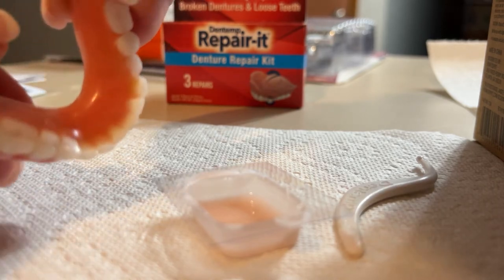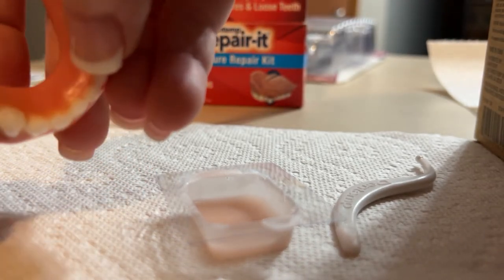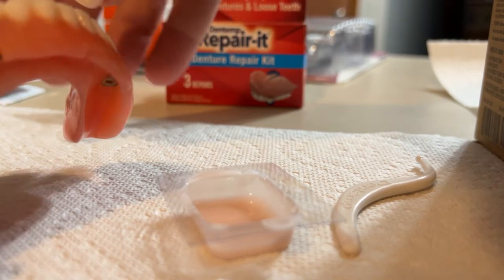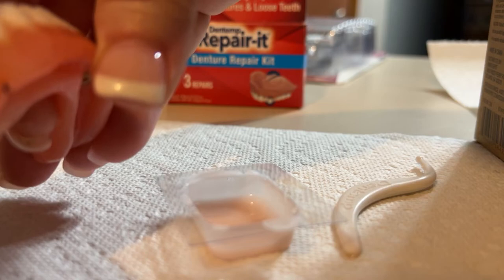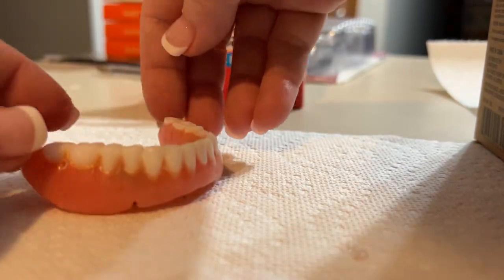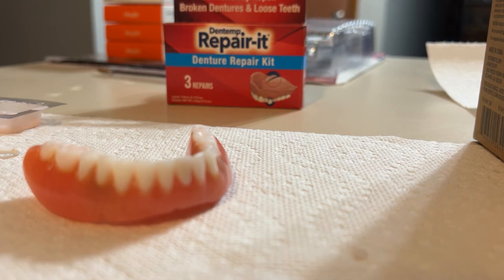It's starting to harden already — you can see there are little flakes. I want to make sure I'm getting those little flakes off before they set up completely because those will become a permanent part of your denture. Make sure there's nothing funky at the gum line, and nothing attached to the top edge of the denture to give your tongue something to play with for the rest of the time you own the denture. Put this aside so I don't have a hellacious accident with it. We are going to let that sit for about 10 minutes. The directions say to hold it in place for one minute, then allow it to sit for an additional four minutes — I don't particularly like the taste of acrylic so I leave it longer.